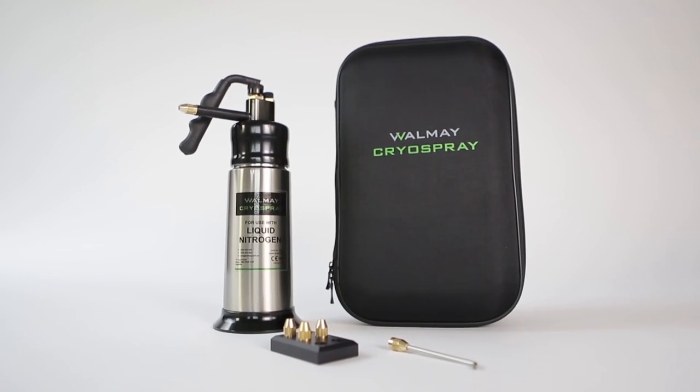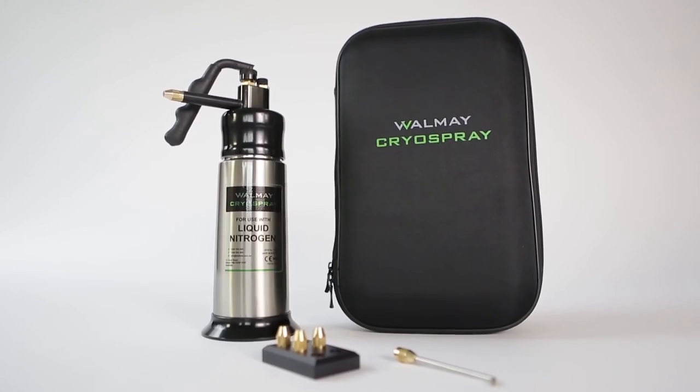This is the new and improved WM161 Walmay Cryo Spray.